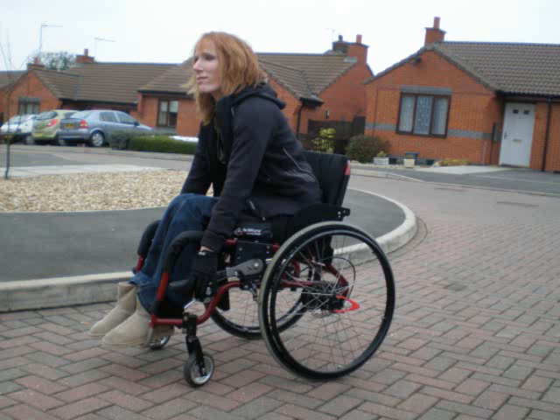Here we see Lisa, a tall person at 5 foot 8, lunging forward and demonstrating the lockdown position. We can see the angle Lisa needs to lean forward, and we can also see how far her back is away from the backrest. We can also see that this position for a wheelchair user is not easy to attain.